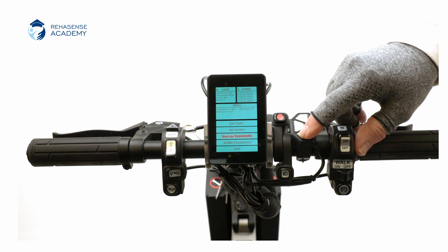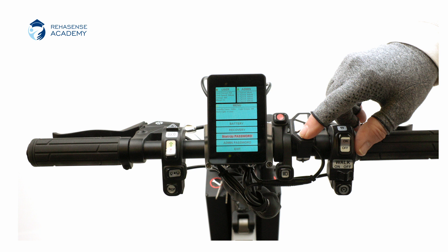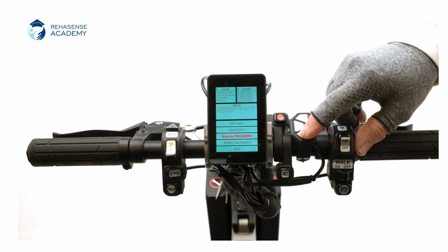The start-up password can be set in order to prevent any unauthorized person from starting your device. However, this is a time-consuming procedure to enter a PIN code every time you are about to start, and we prefer to use a mechanical lock in order to prevent unauthorized use.